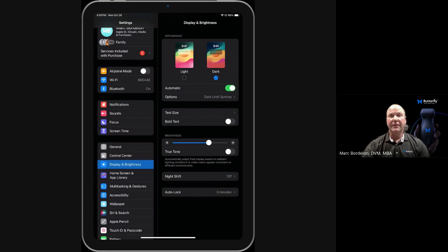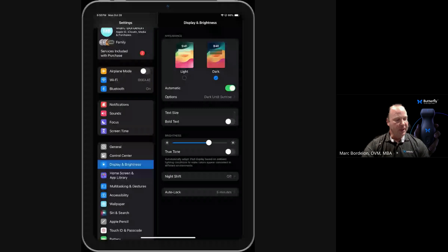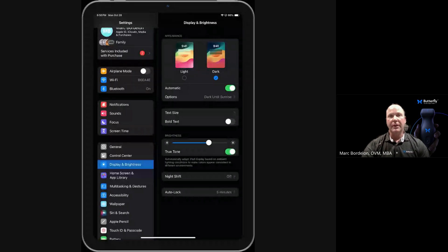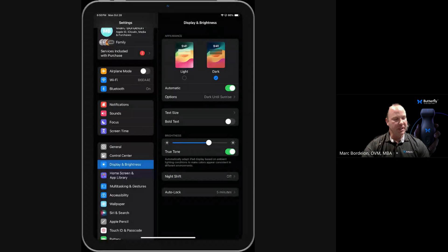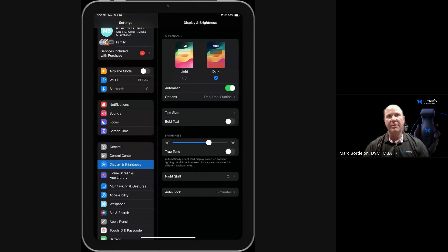Another thing that can affect the gain and the overall quality of the picture is something called True Tone that you'll find right underneath the sliding bar. That button, when turned on, looks green. We just need to make sure it's adjusted off when using the Butterfly app, because that will change the brightness based on the ambient light that's within the room.